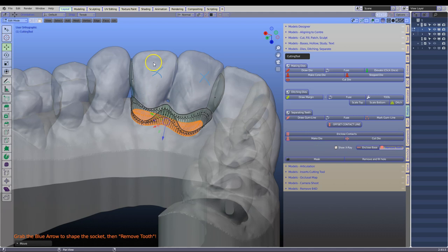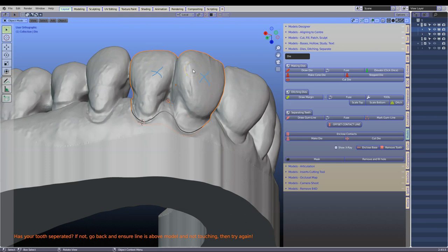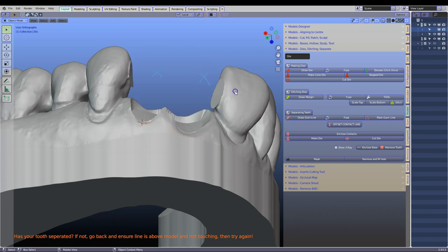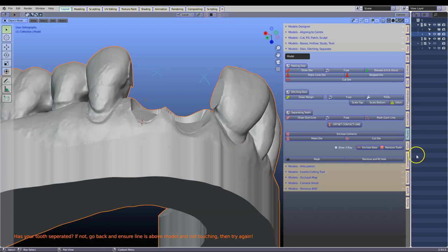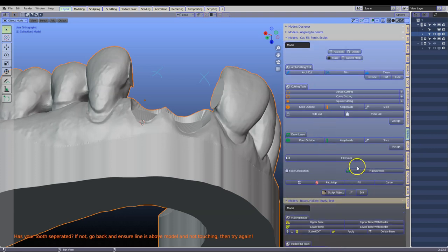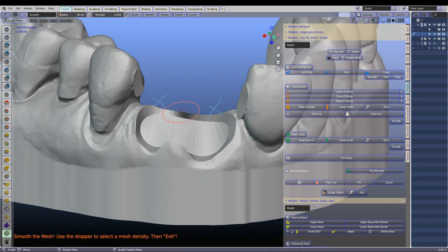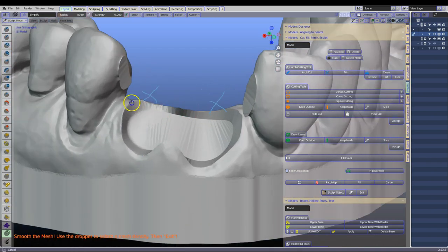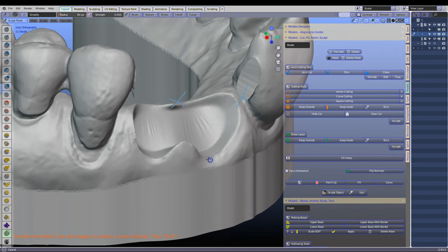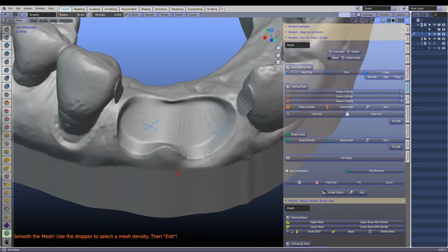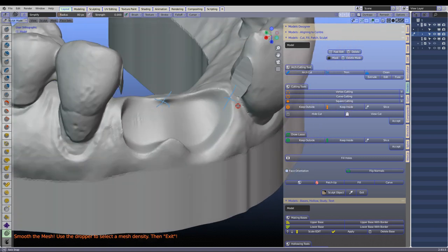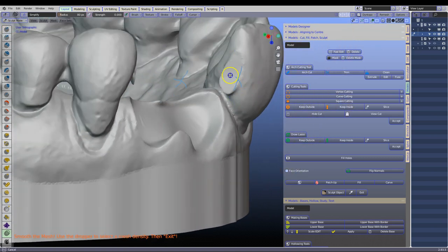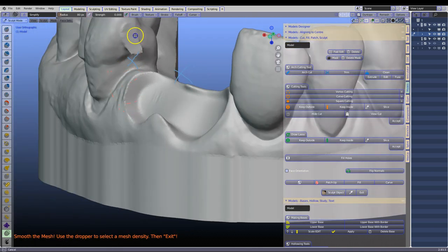Now we should have two objects on the scene, your model and the remove tooth. I am going to hide. H to hide. Select your model. Go to the block out module. So not the block out. Go to the model designer which we are in. Go to the sculpt tool and click sculpt. This is so that we can get a nice smooth indent, an extraction socket. So here I am smoothing this down. And this will then become the fitting surface. And the contact likewise. Just smooth it down a little bit like that.